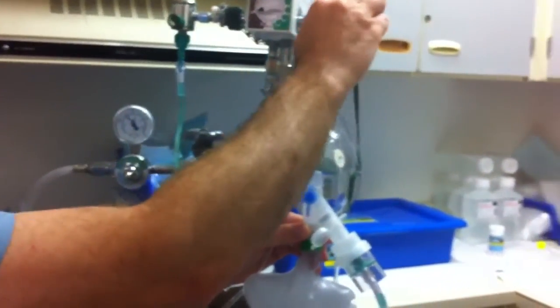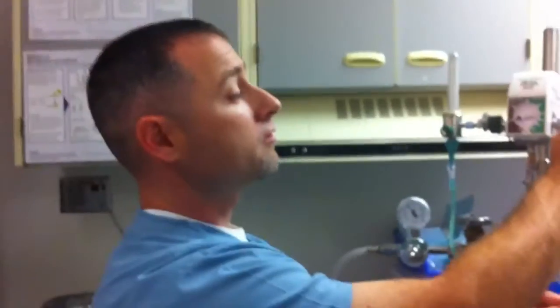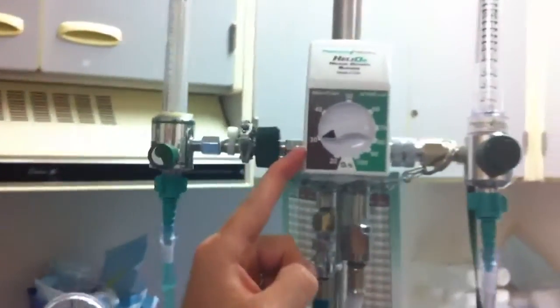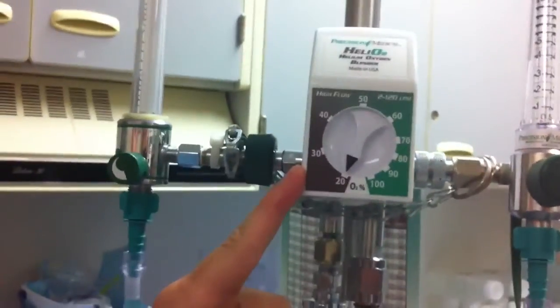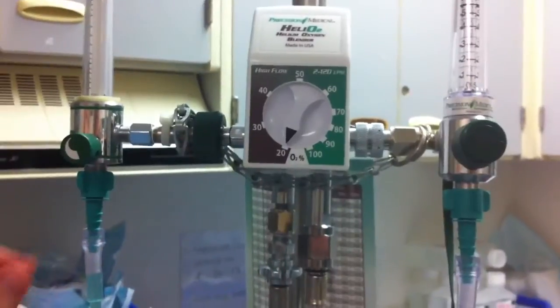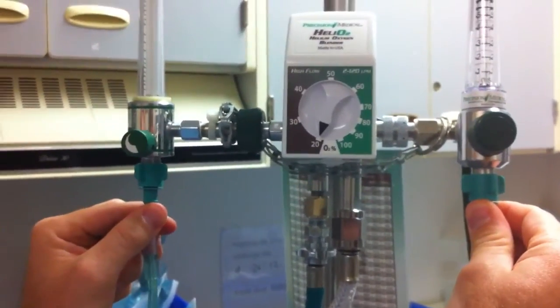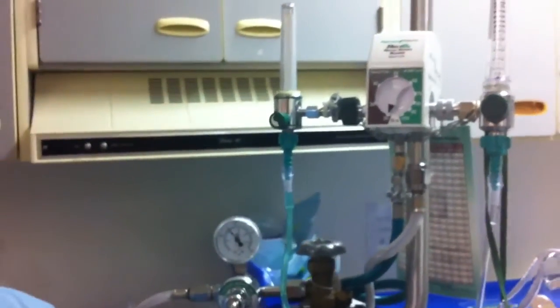From these two flow meters — the reason why we have two flow meters on the sides — is so that when we set it at a 70-30 mix or an 80-20 mix, we're getting that 80-20 mix through both flow meters. So we're not blending in any compressed air or any extra oxygen.